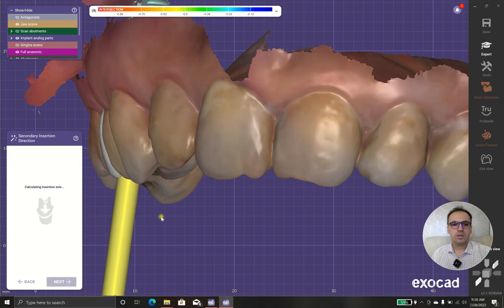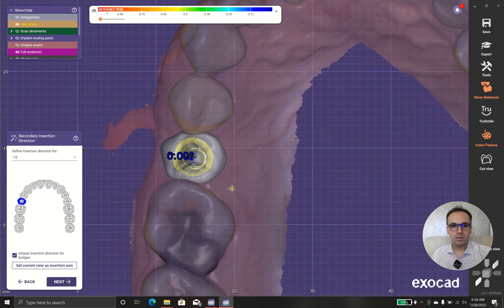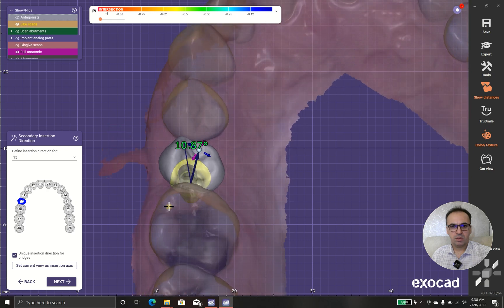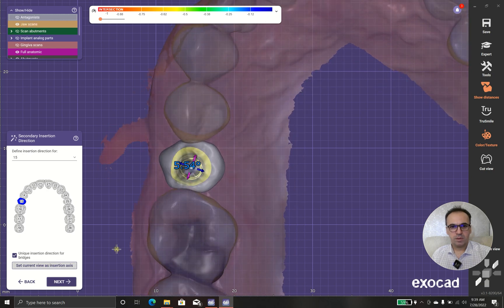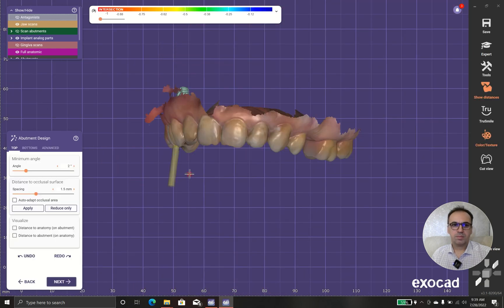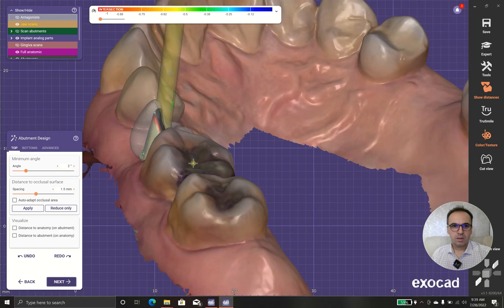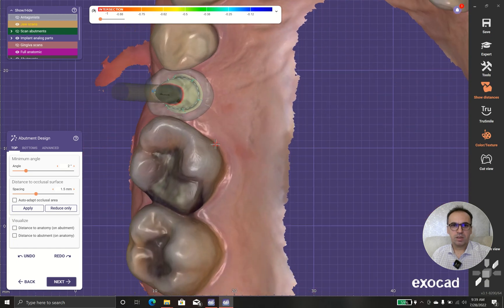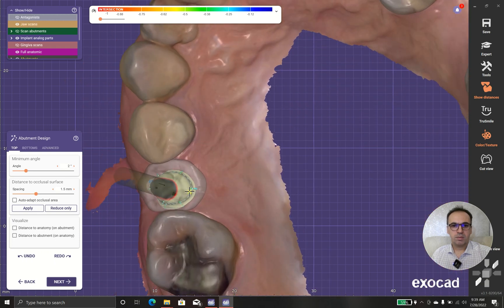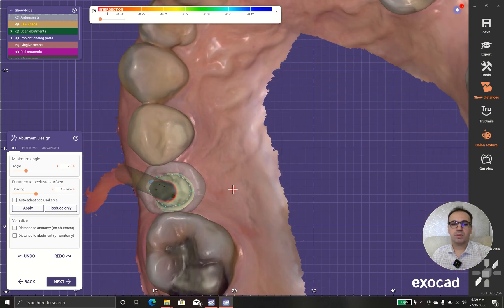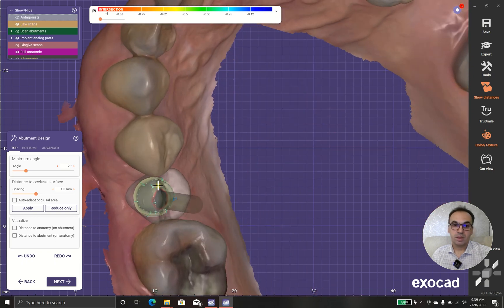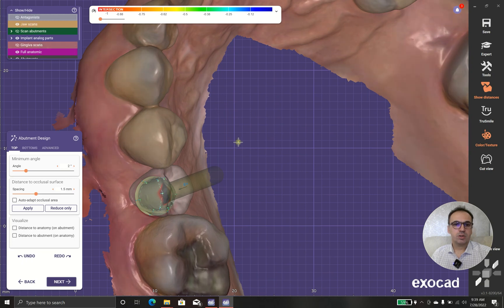When you're happy with your design, you can go to design your abutment. I choose a little bit different angle from what the system proposed. And now for the final design — the teeth looks like a canine. And because we have a supereruption option in the opposing jaw, there is a little bit of a shortage of space.